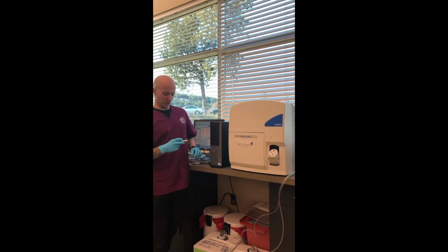Now in our lab, we use the Horiba Difftrol low, normal, and high controls. So in order to make sure these controls are well mixed, you want to make sure they're sitting out for 15 minutes, which they have been. And according to the package insert, you want to keep it horizontal and roll it in between your hands for 15 to 30 seconds, which I've already done, so I'm not going to do it again now.